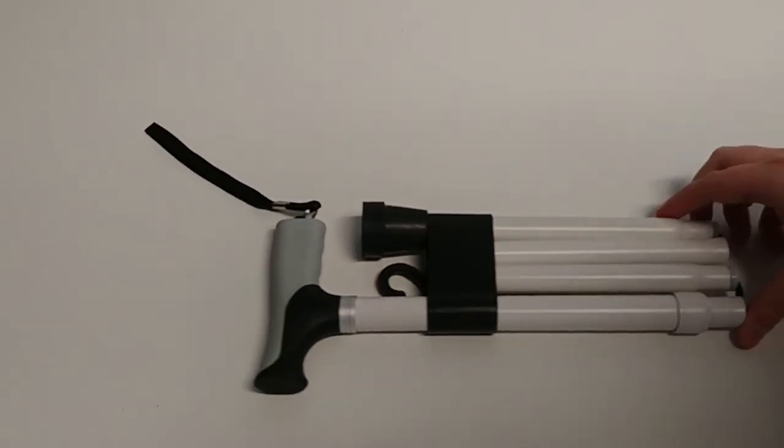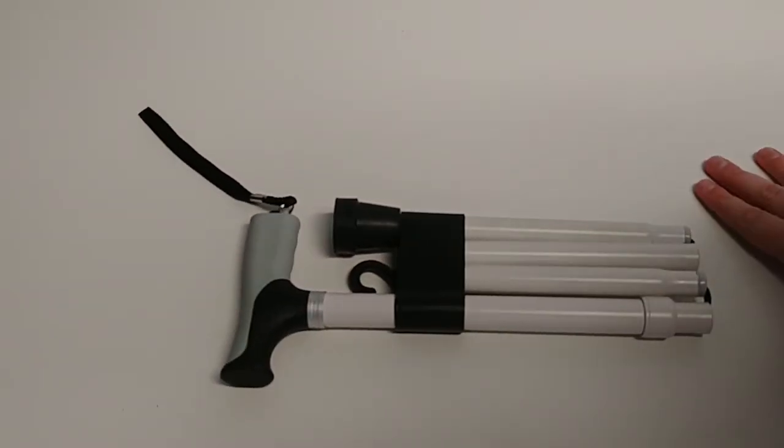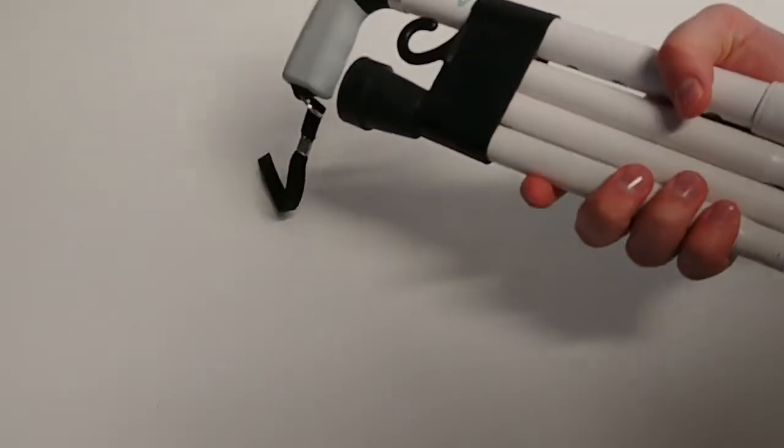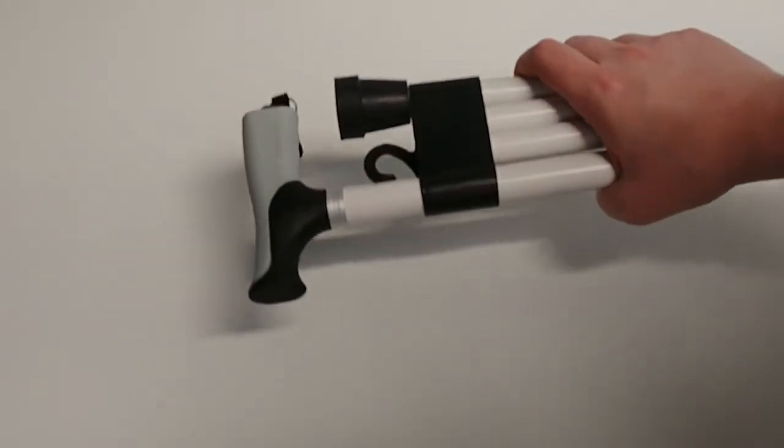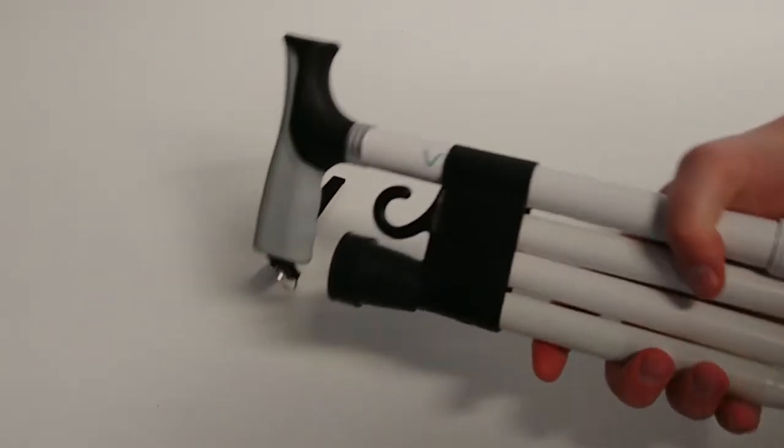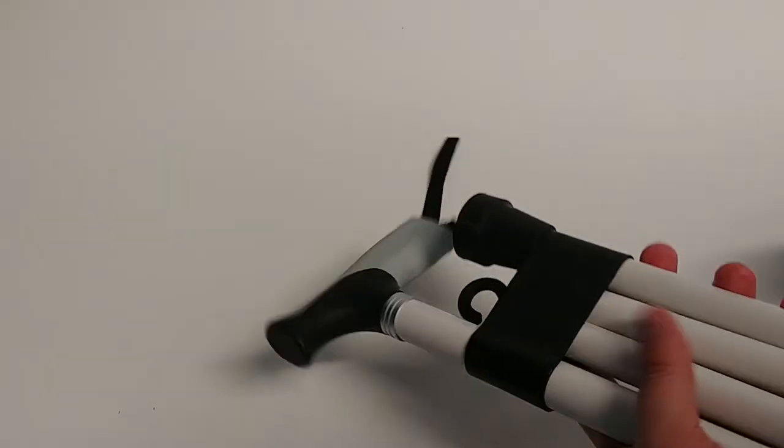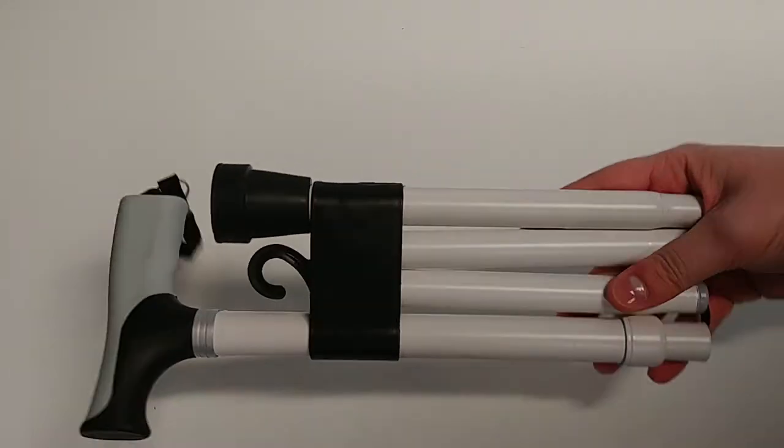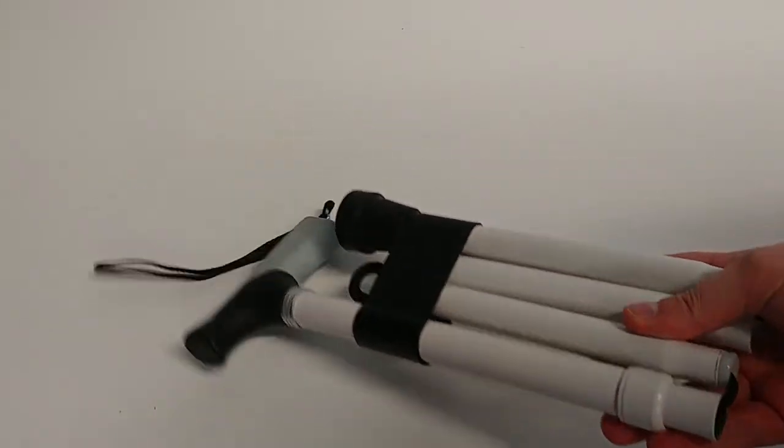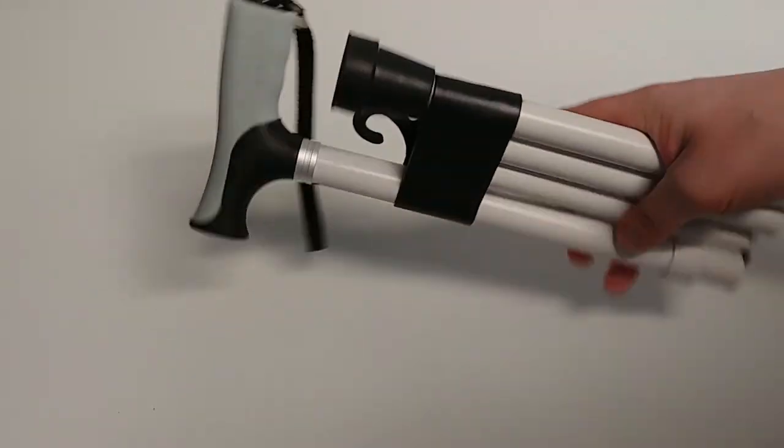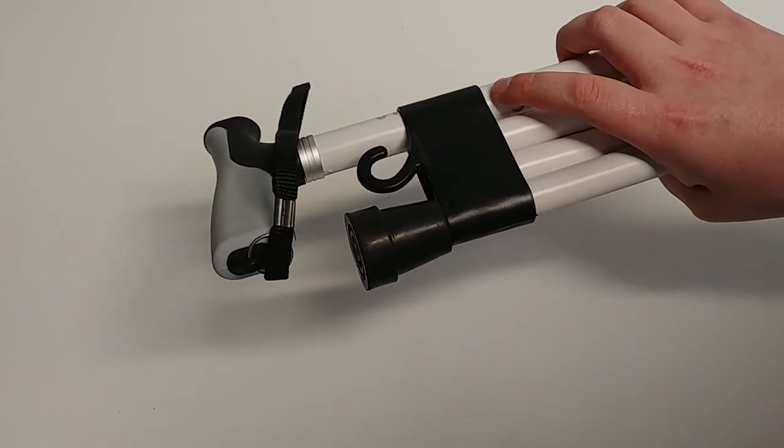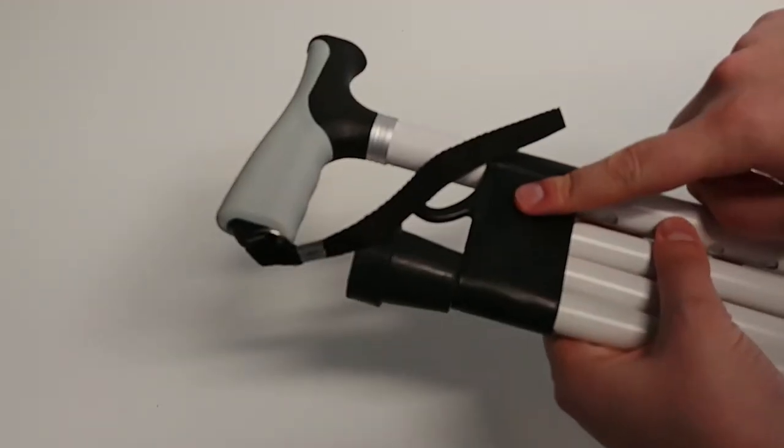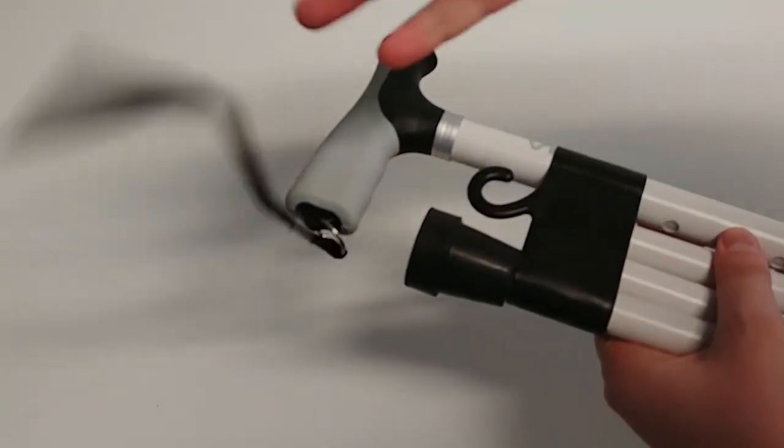Okay, just going to put together a quick video here on unfolding and folding the Vive folding cane. This is how it'll come out of the packaging, just wrapped up like this. You might think you have to cut through this black plastic strap.